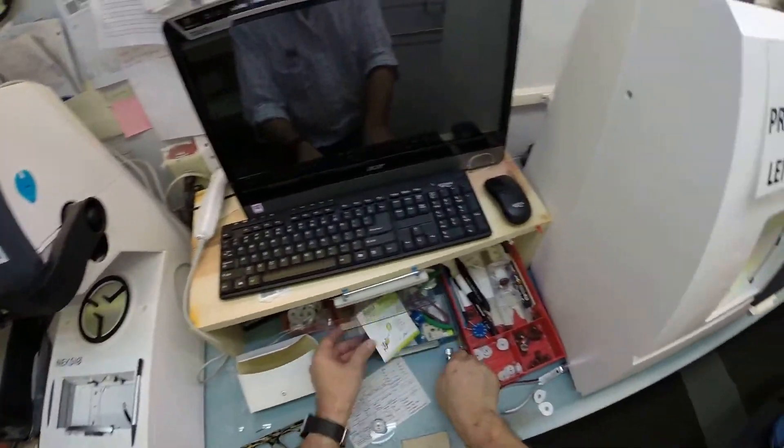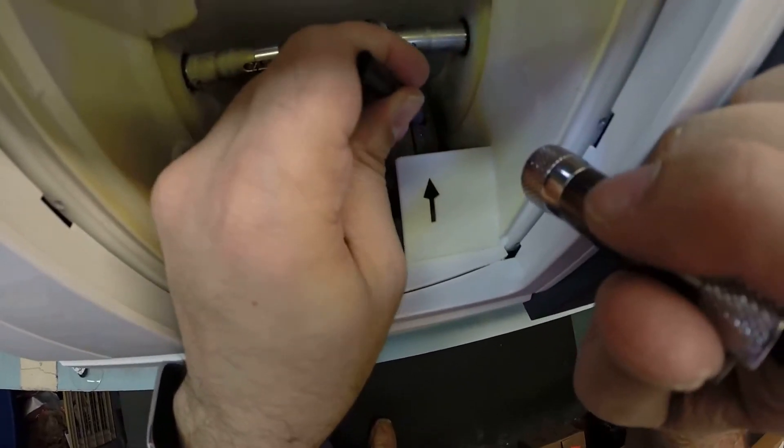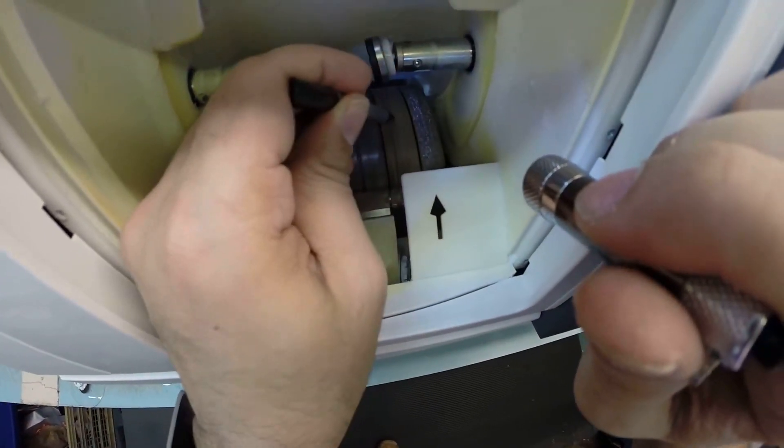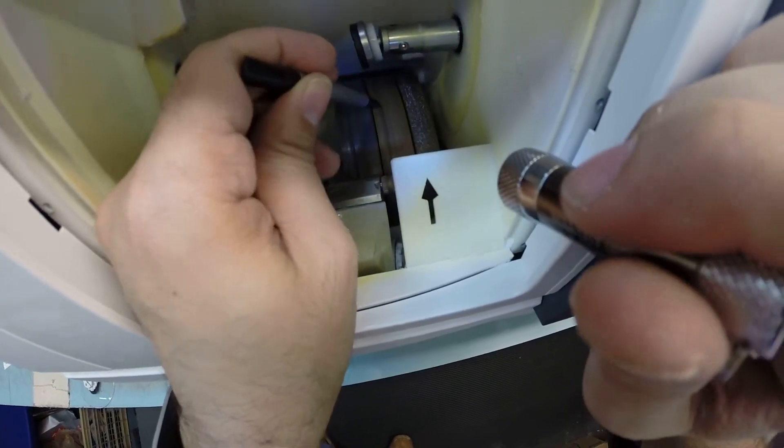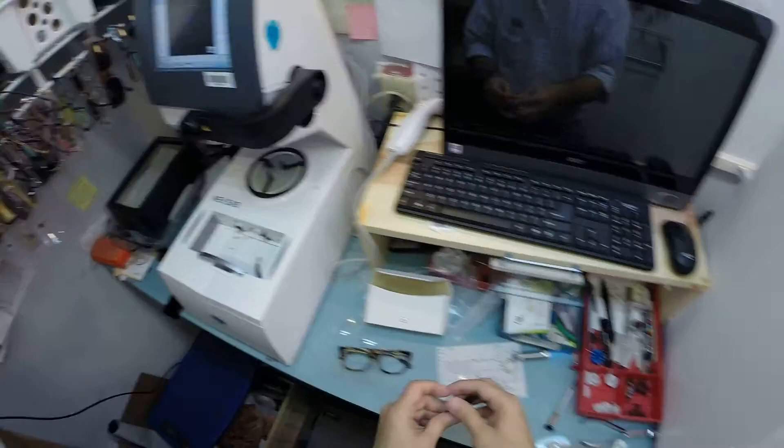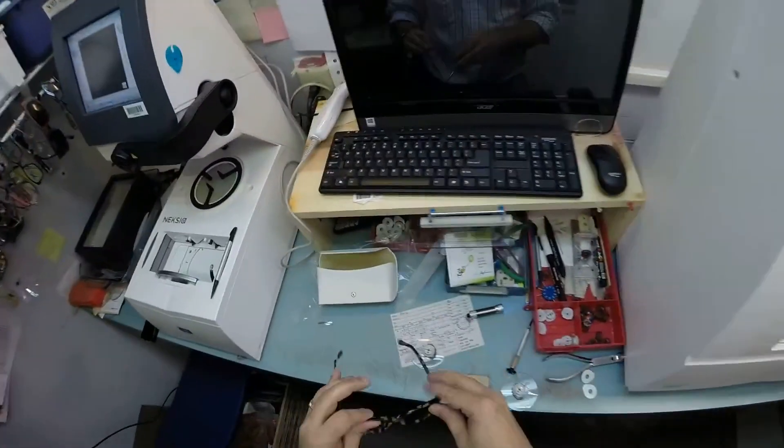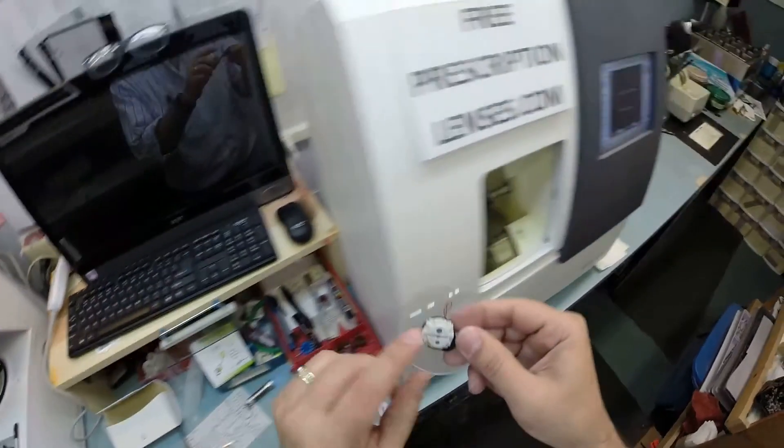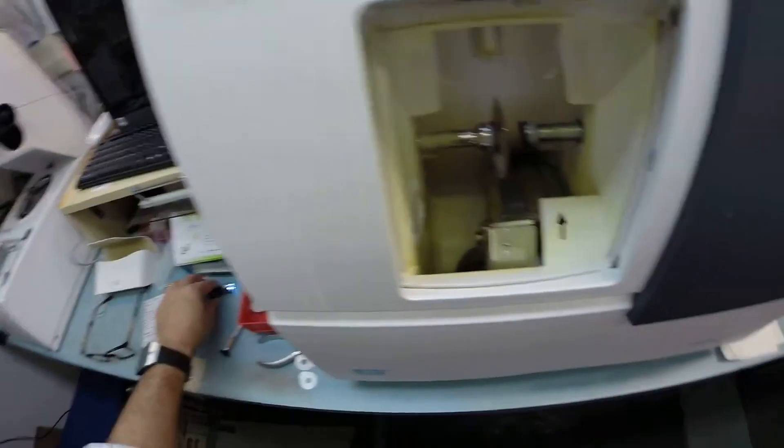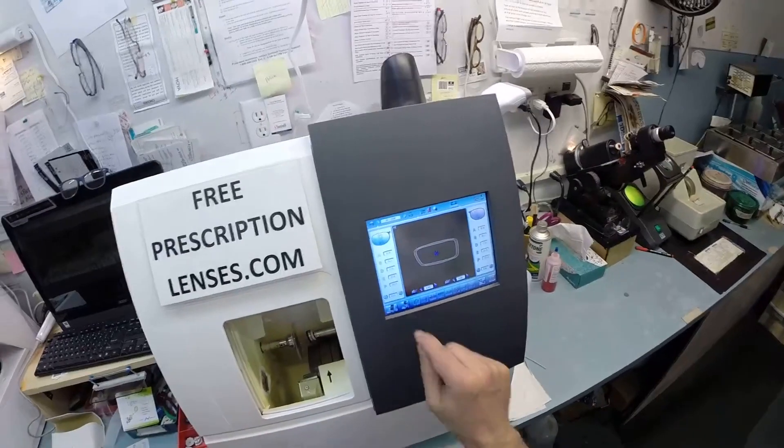Let's do the same thing for your left lens. Pull the paper away to make this side sticky. Get you the 3M brand adhesive sticker. Get everything lined up just perfectly. Your optical center right there where it's supposed to go. These two dots lined up opposite of that to tell me that's oriented in there just perfectly. Hit that button. The arm comes down and places the block onto the lens. The magnet is going to do its job a second time. I'm going to put it right there and it holds it in place in the chuck, or as I like to call it, the Charles, because I don't know the machine well enough to call it chuck.